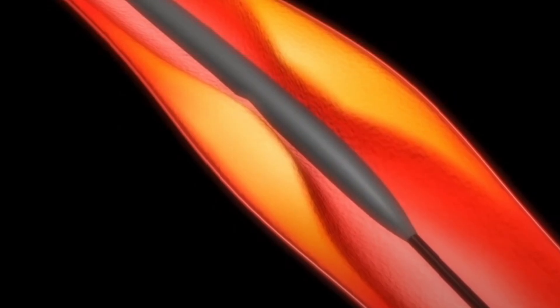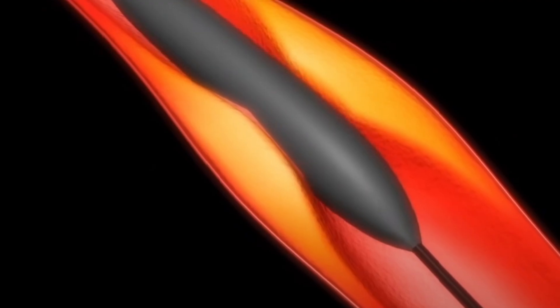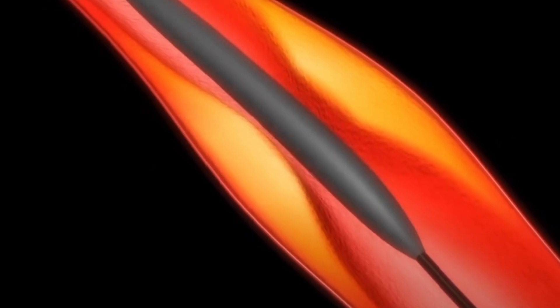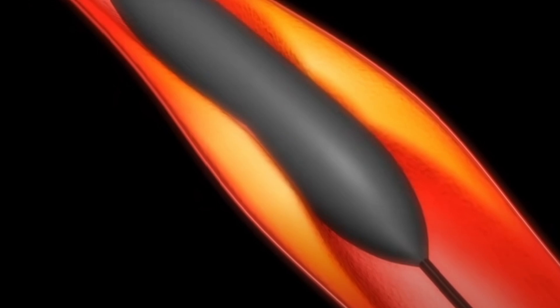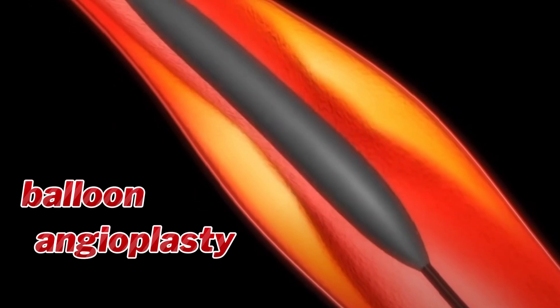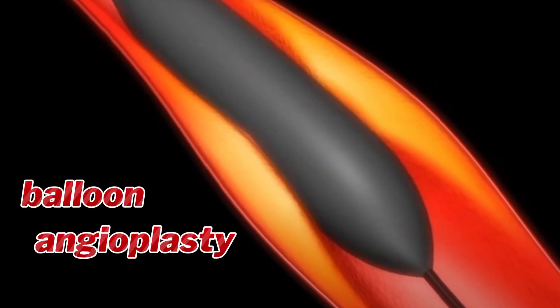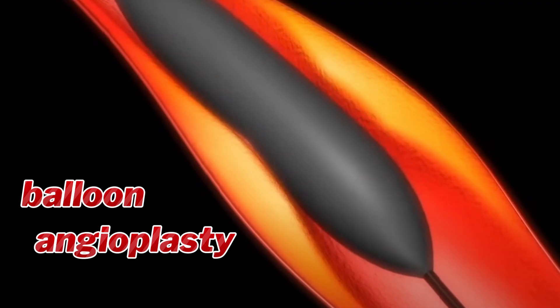A balloon-tipped catheter is then guided over the wire to position itself at the site of the blockage. Rapid inflation and deflation of the small balloon pushes the vessel wall out, re-establishing the flow of blood in the artery. After the blocked vessel is reopened, the deflated balloon catheter is withdrawn from the artery. The same treatment procedure is repeated in the case of multiple blockages.